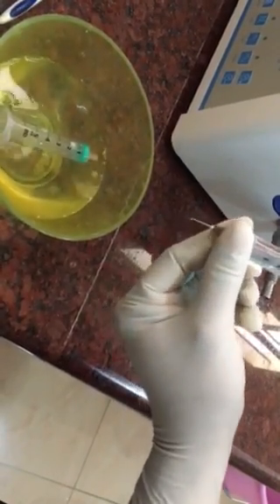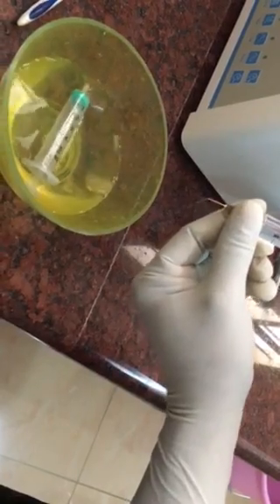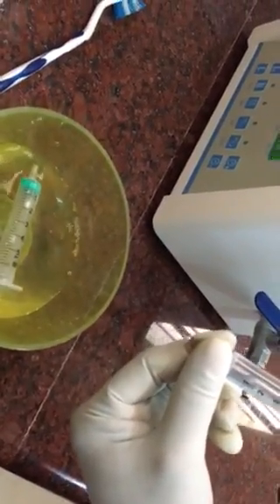If there is any block, you can redo it. See that the full stream comes coaxial to the needle. It's not a perfect one — you have to redo it a little more. And see that there are no sharp edges.